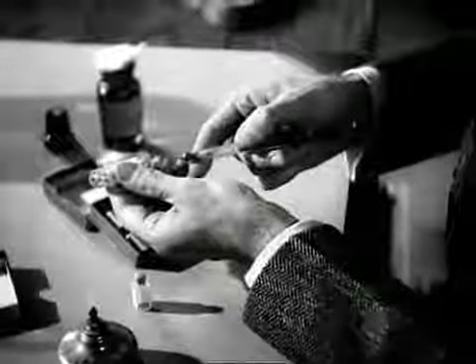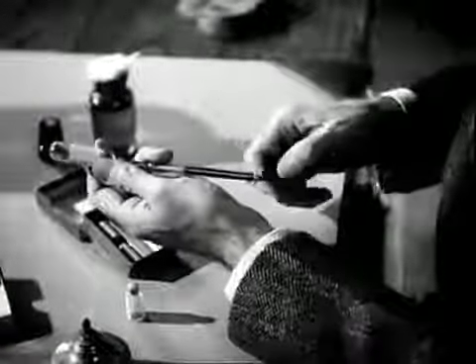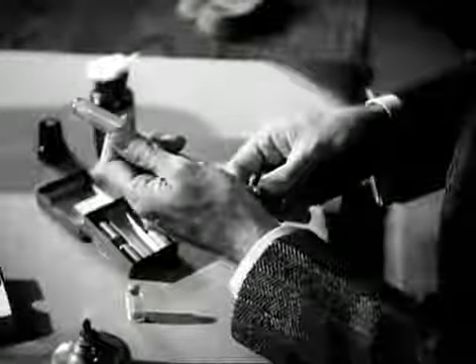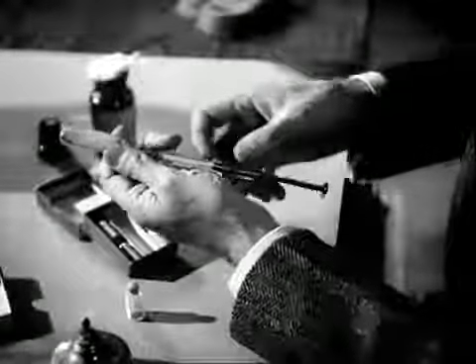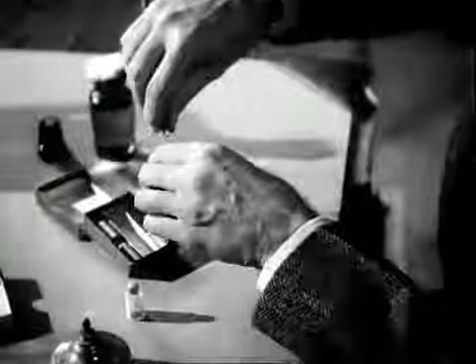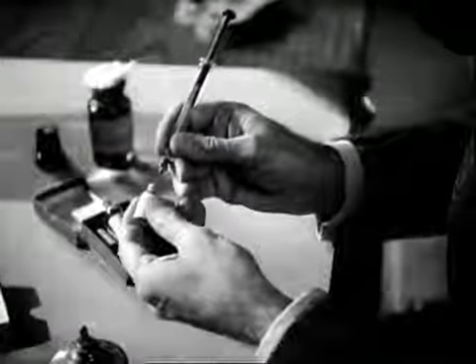Draw the sterile buffered saline solution into the syringe, and transfer it with aseptic precautions to the bottle containing the tablet.